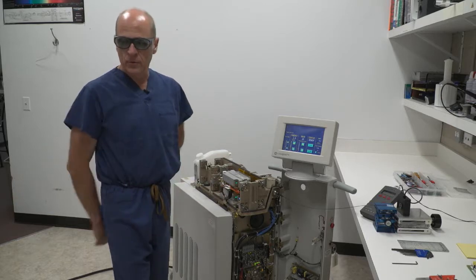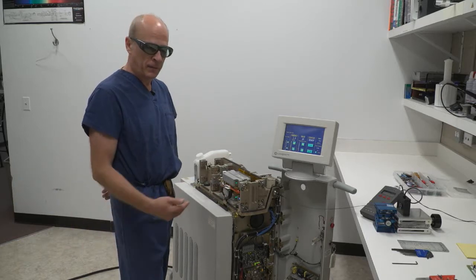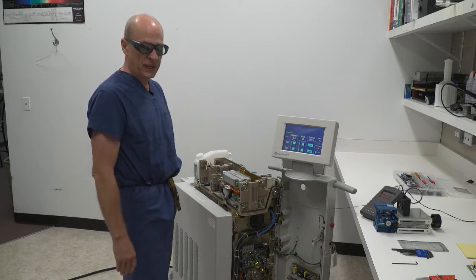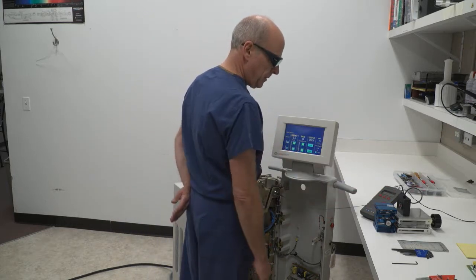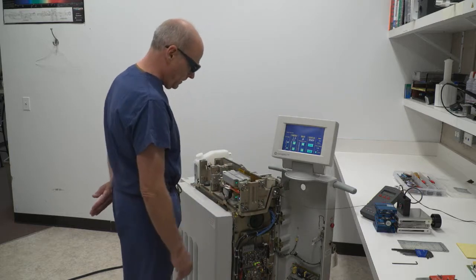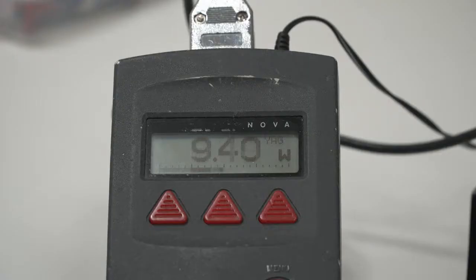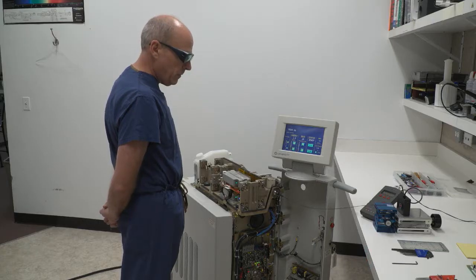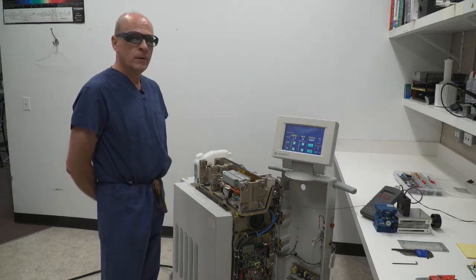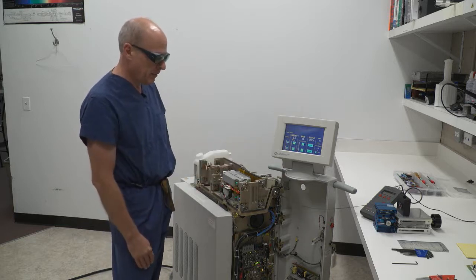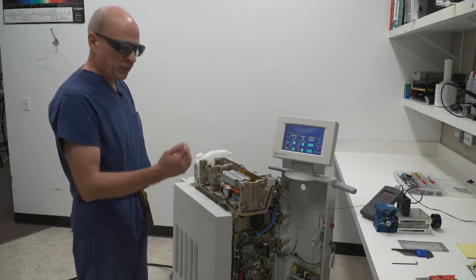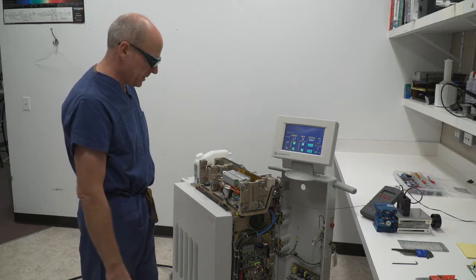Again, I'm going to let everybody in the room know that I'm about to fire the laser and that their safety glasses need to be on at this point. My fiber is directed into my mirror safely and my meter is indicating roughly three or four percent over the 10 watt calibrated factor. I have a brand new fiber on here and I'm going to bring that down in just a moment, a percentage or two.